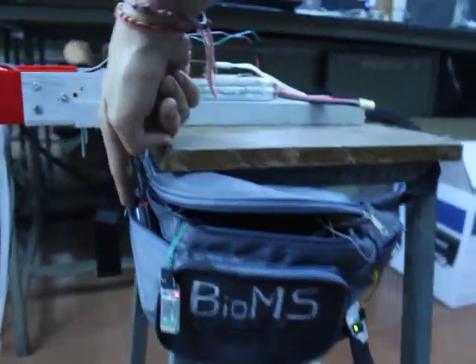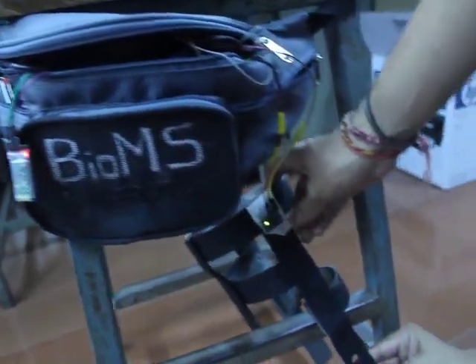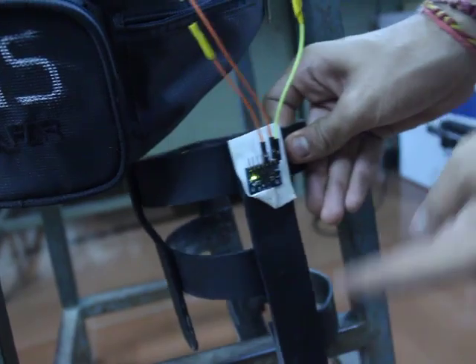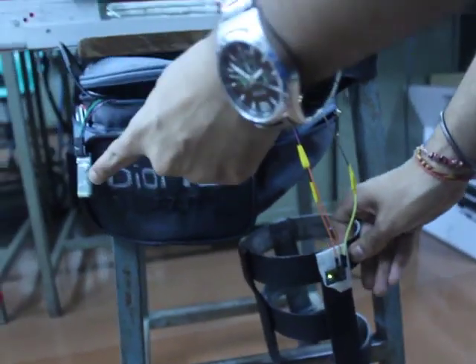The sensor data is being procured by this motion sensor, which is mounted on a metallic mount that the user will wear on their normal leg. The data will be sent through Bluetooth, and then the processing will be done on the leg.